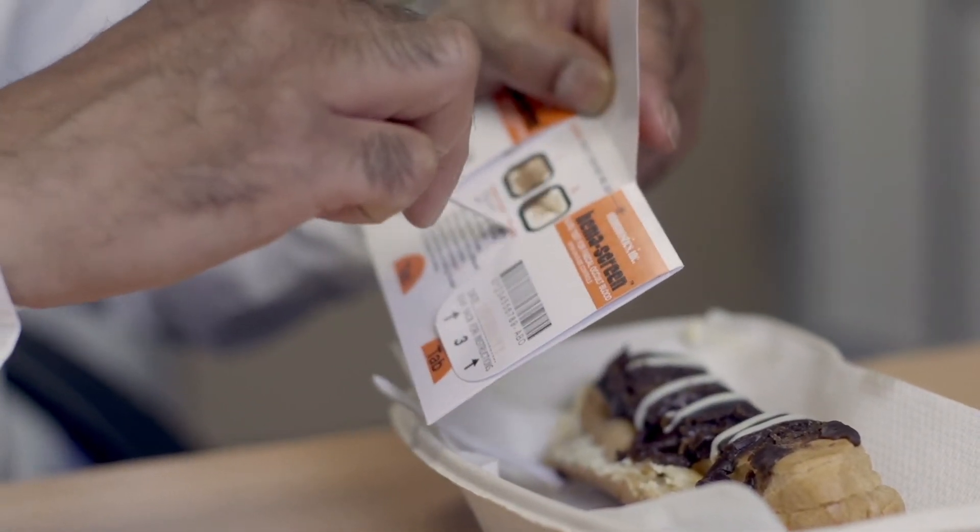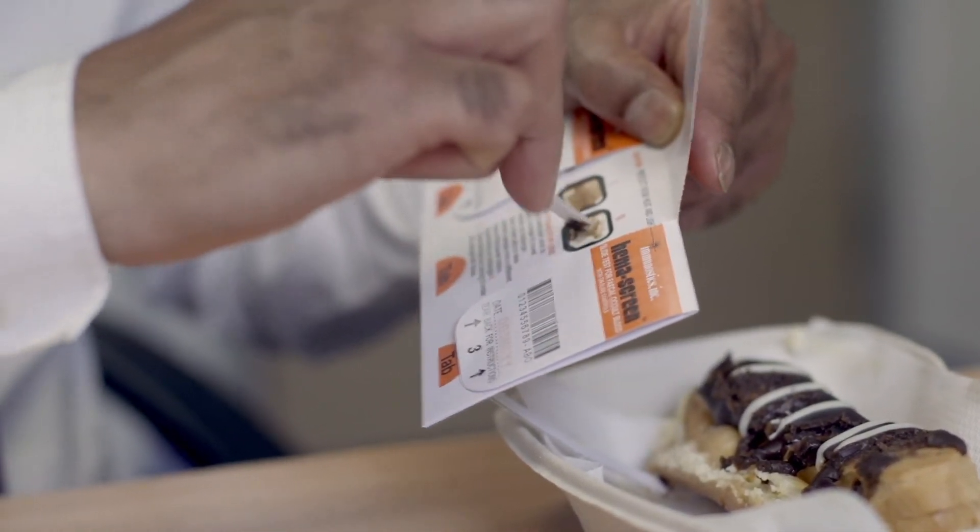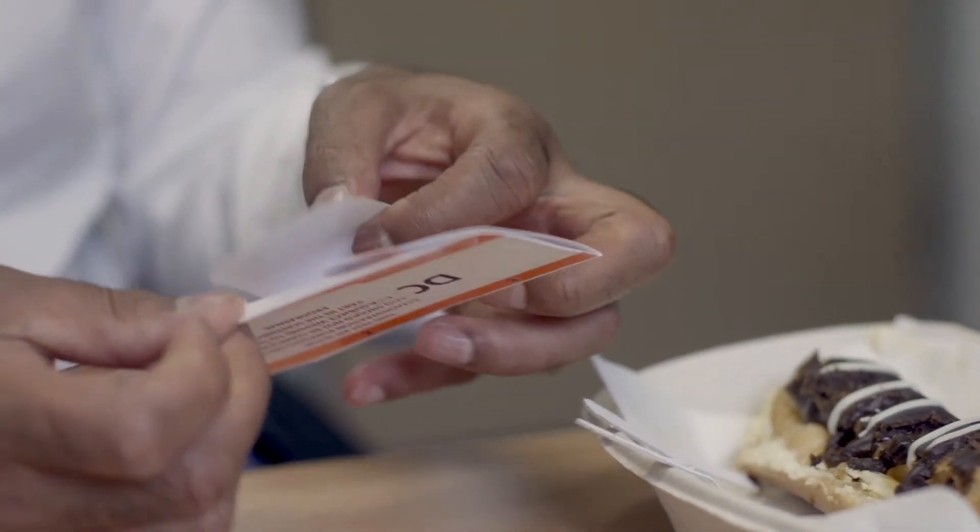Make sure you store the kit in a cool, dry place until your next number 2. Over the next few days you'll do this exercise 2 more times, each time completing 2 windows under each tab. Double check you've written a date on each tab, put it into the freepost envelope and pop it in the post.